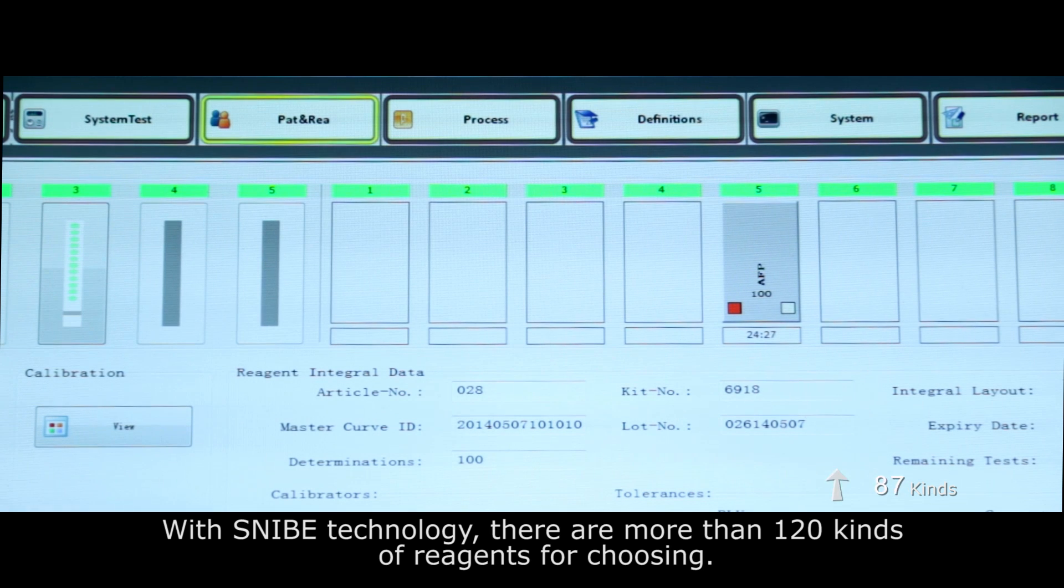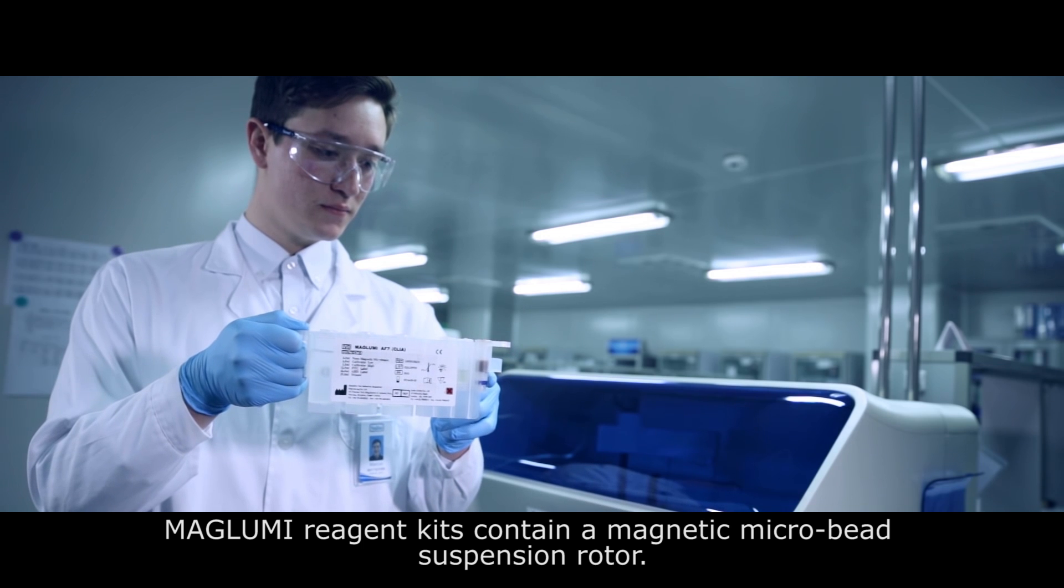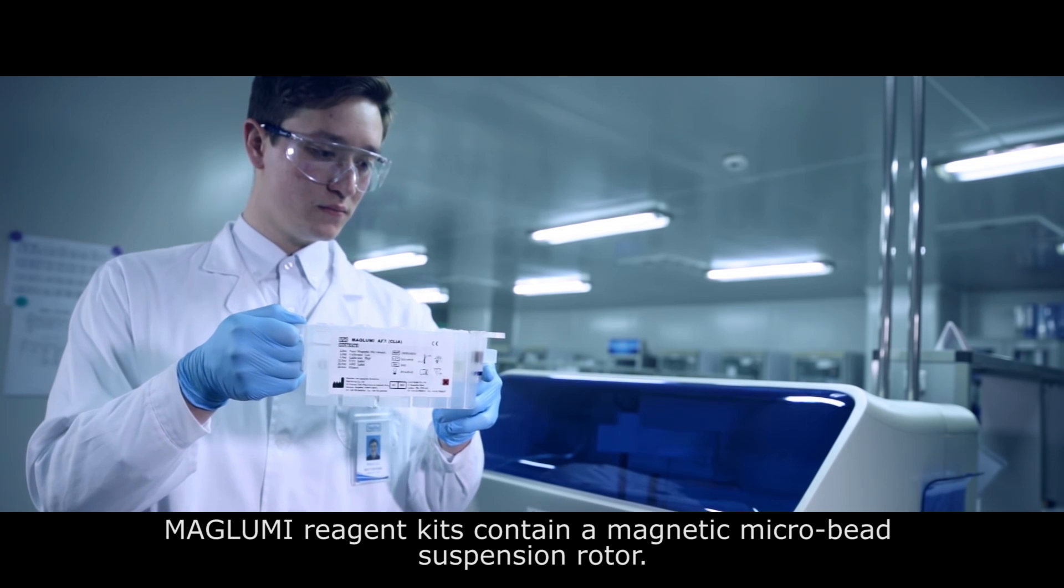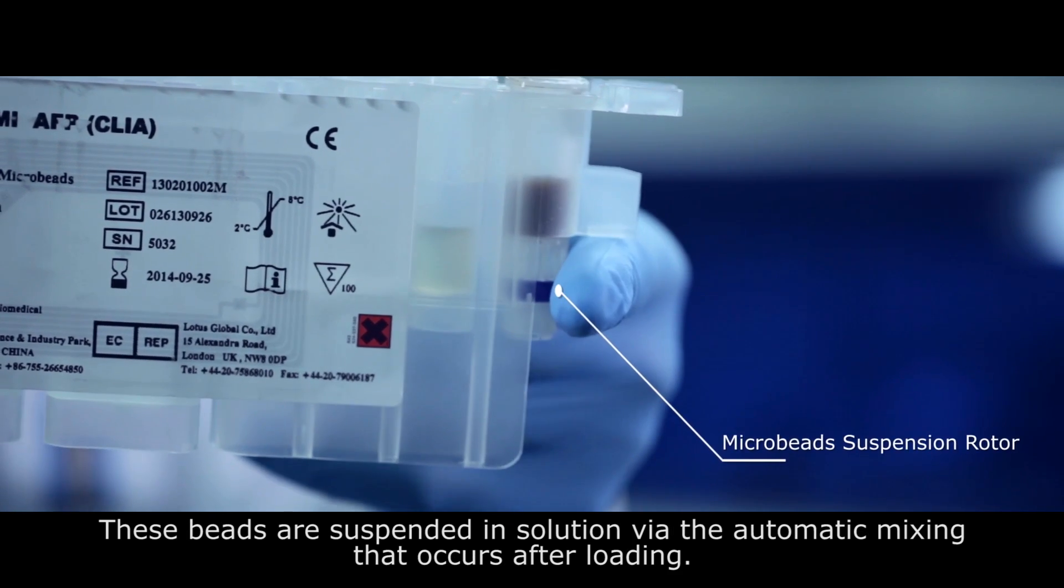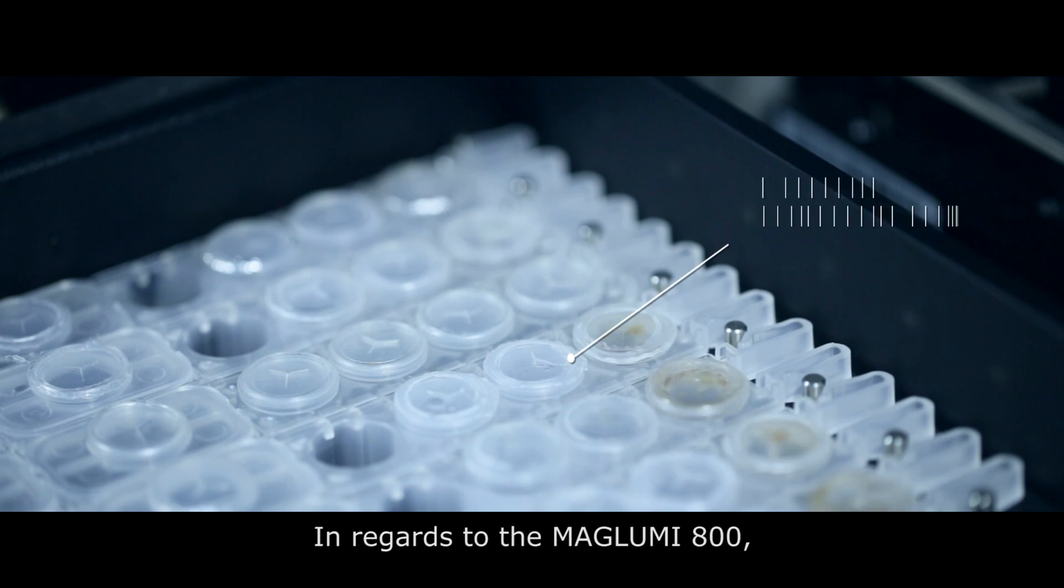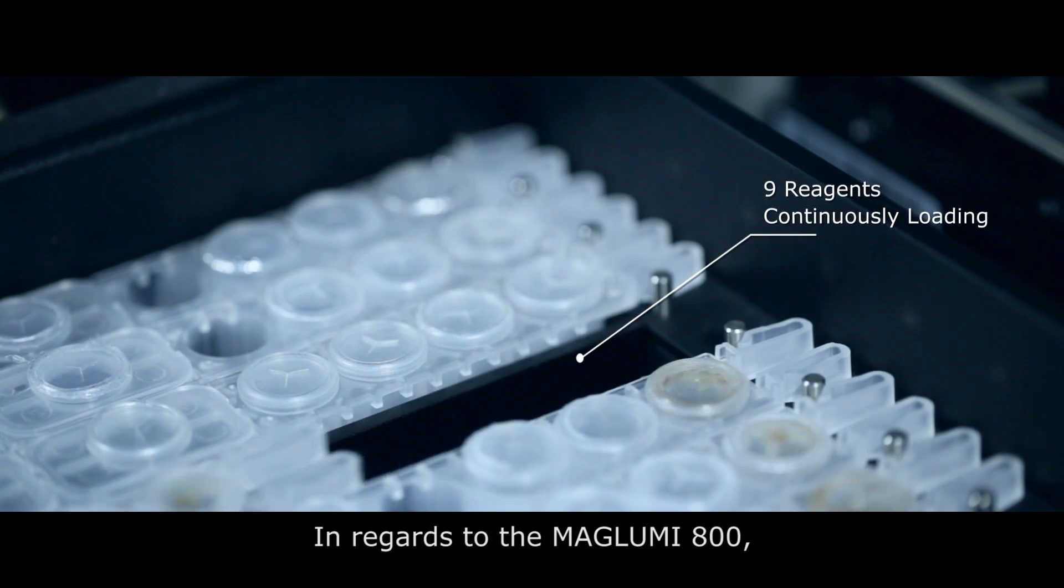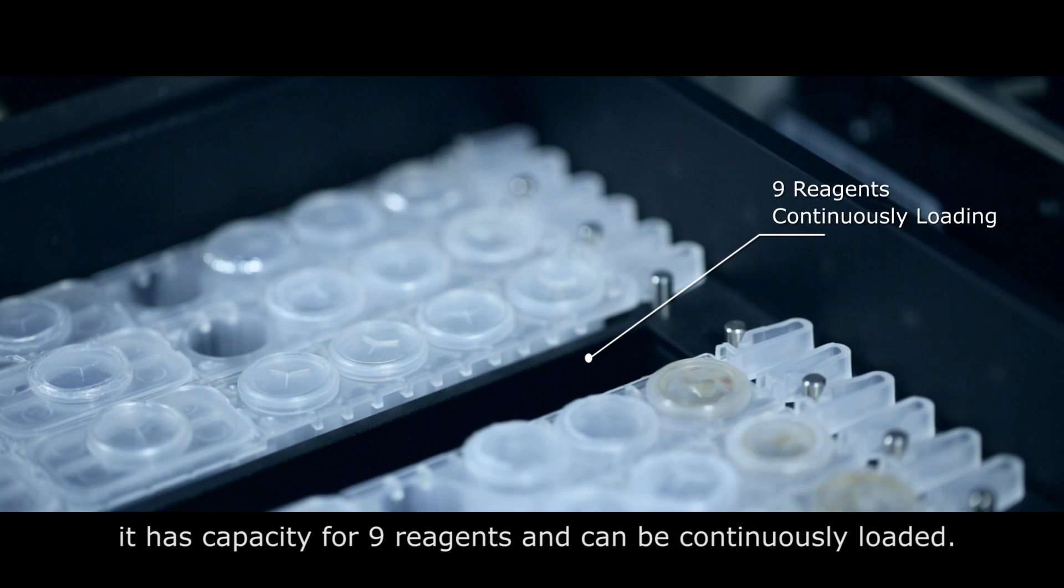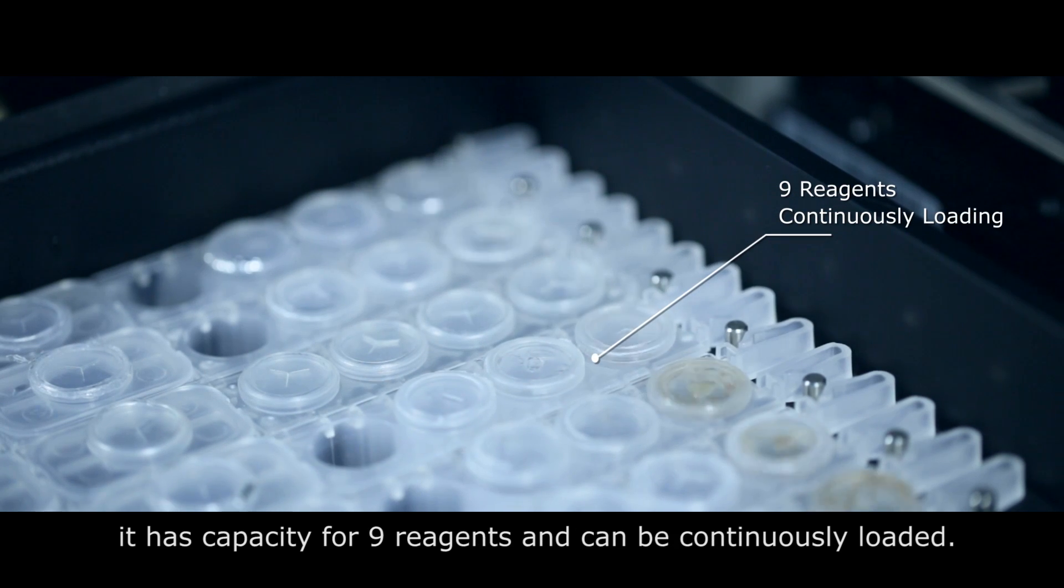With Snibe technology there are more than 120 kinds of reagents for choosing. Maglumi reagent kits contain a magnetic microbead suspension. These beads are suspended in solution via automatic mixing that occurs after loading. The Maglumi 800 has capacity for nine reagents and can be continuously loaded.